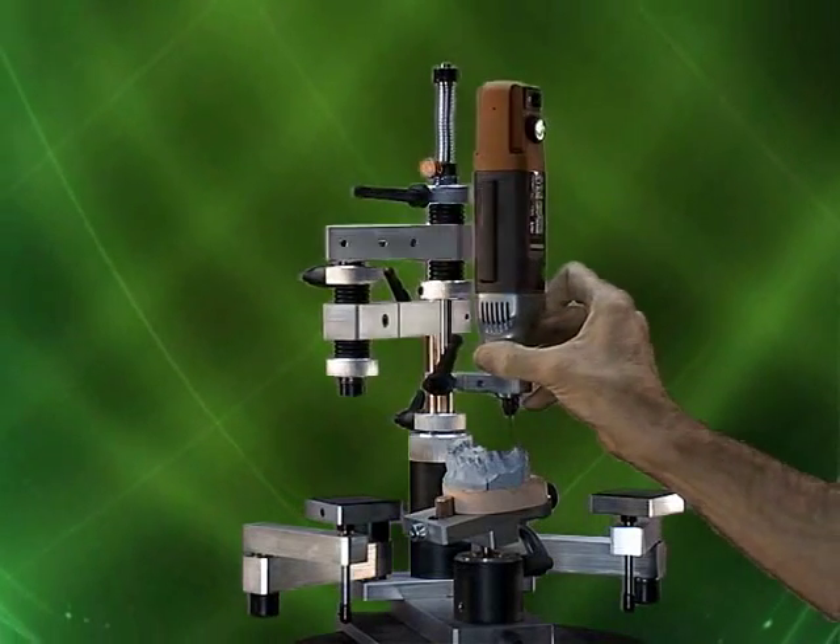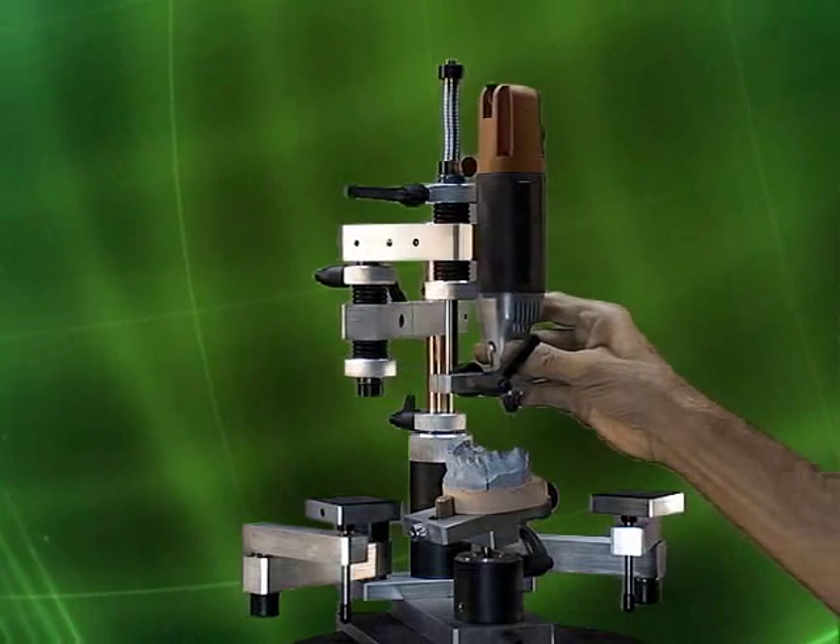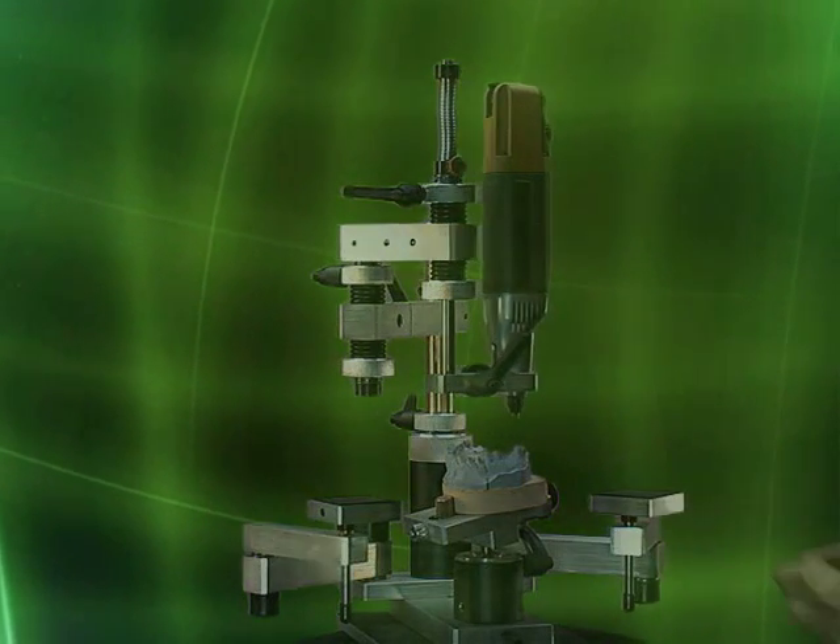And of course, if you still want the ability to move freely up and down, you can move the primary arm a little bit lower until the motor is in what we call the sweet spot — the ideal working area.